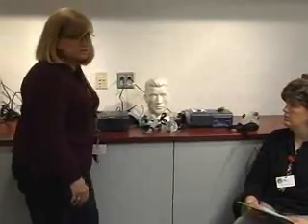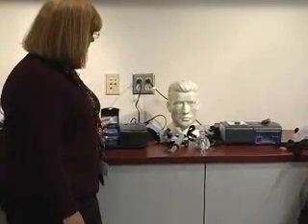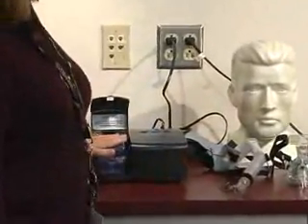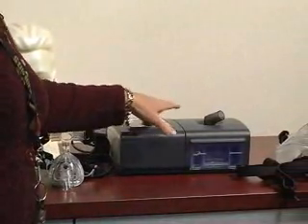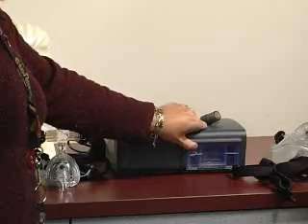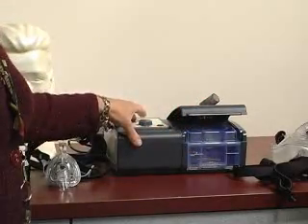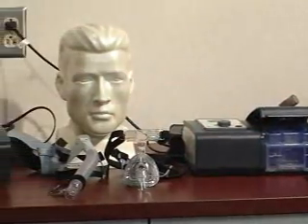Where is the humidifier located on these machines? The humidifier on the Respironics M Series is located on the left-hand side of the actual CPAP device — two separate pieces of equipment. With the Philips Respironics Sleep System 1, it is located to the right of the CPAP. Again, two separate pieces of equipment: this side is CPAP, this side is the heated humidifier.